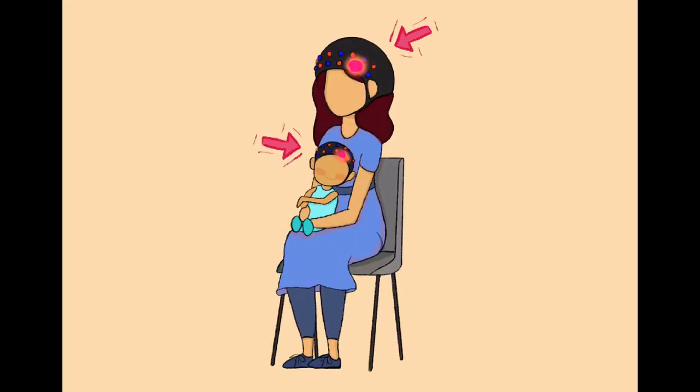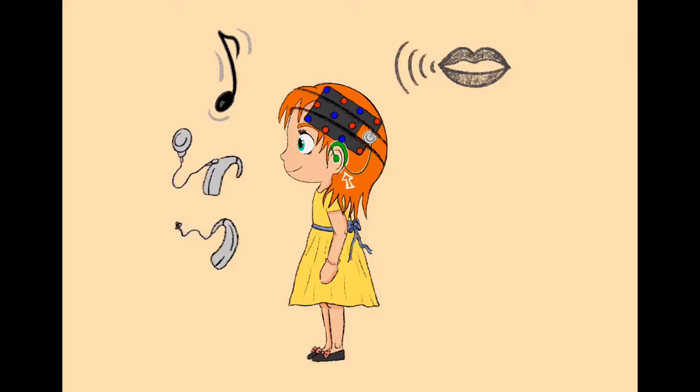fNIRS is not harmful and is very safe. This makes fNIRS also suitable for very young children and even babies. Isn't that cool? Children who are facing difficulties, for example with hearing or attention, can also take part in a fNIRS experiment.